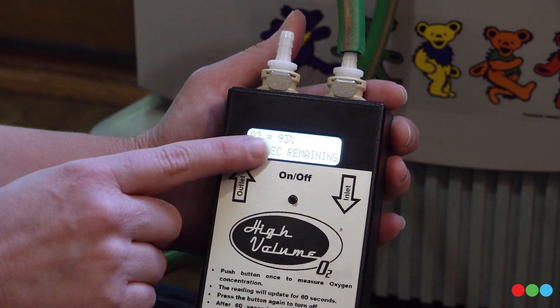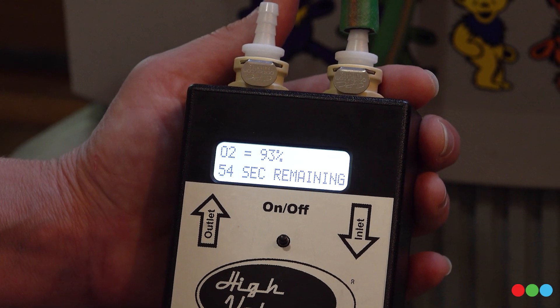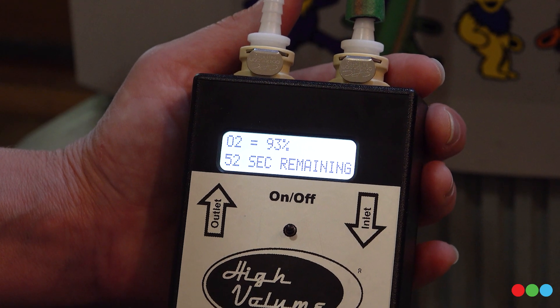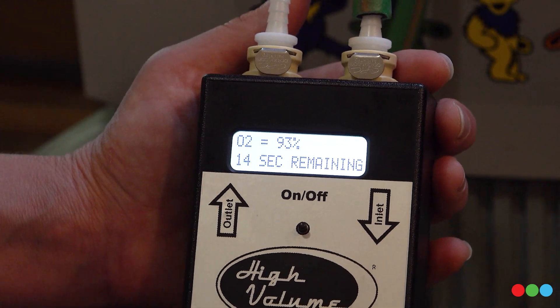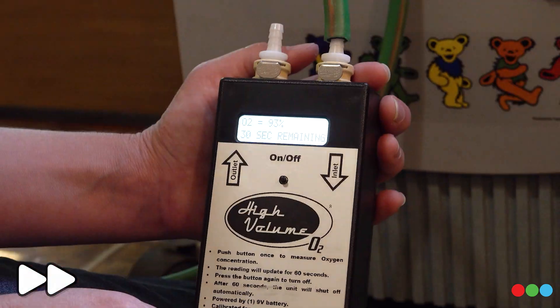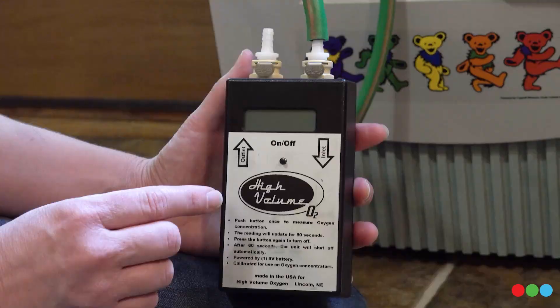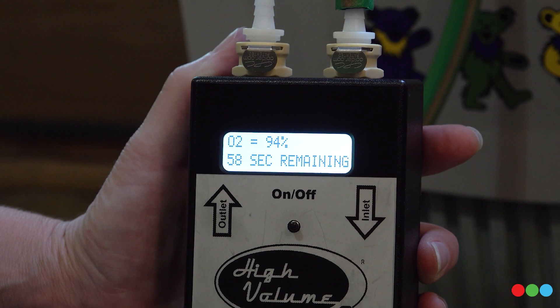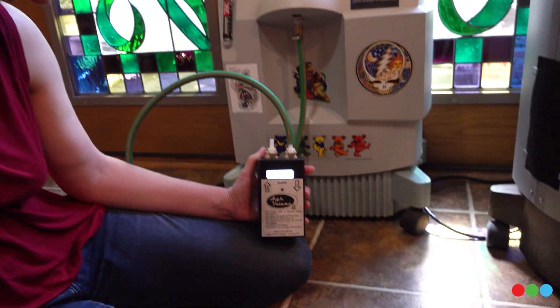Now we're talking 93 — and in a little while I think it'll hit even 94. These are a little bit older machines, but this is pretty typical — they just take a minute or two or three to get up to purity. And there we have it: 94 percent. Thanks to my testing model. Appreciate you guys.